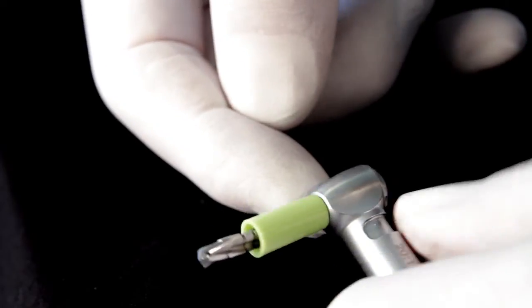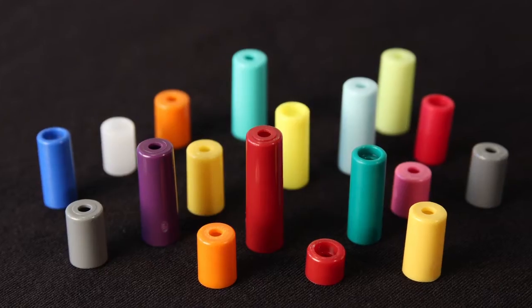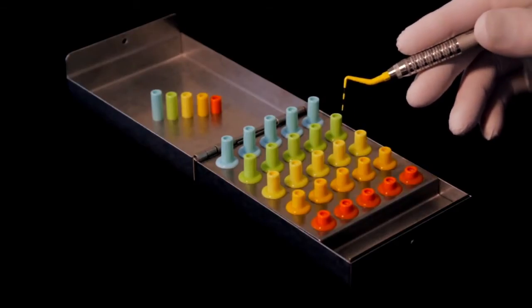By having a larger overhang on narrower drills, they work well over extraction sites. The outside diameter is 6.5 mm. The length of the stop is scribed on the drill stop. One can order individual lengths or kits with multiples of the most commonly used surgical drills.